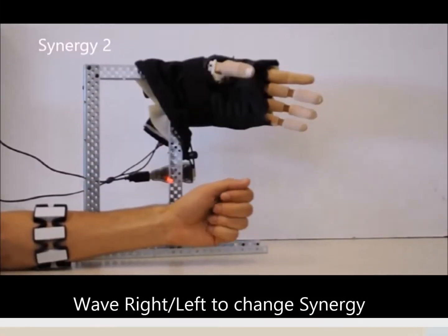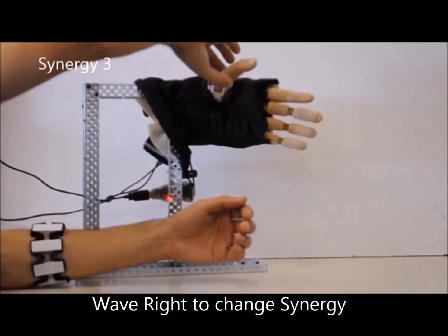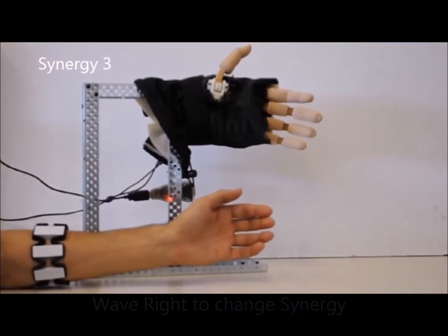The trajectory of fingers for grasping objects is defined based on the Human Grasp Database that contains 33 grasps required to perform the daily tasks.